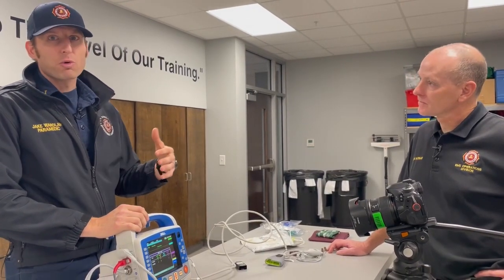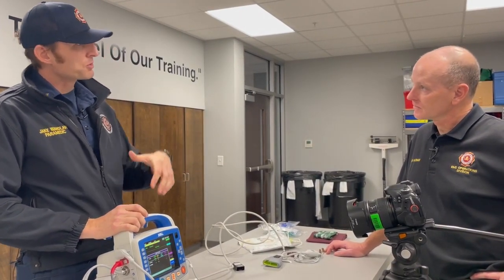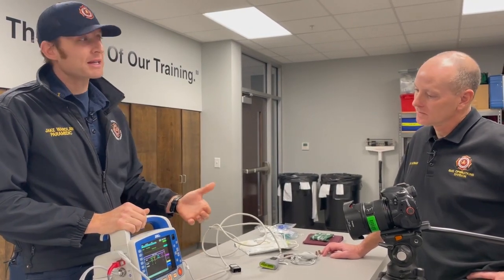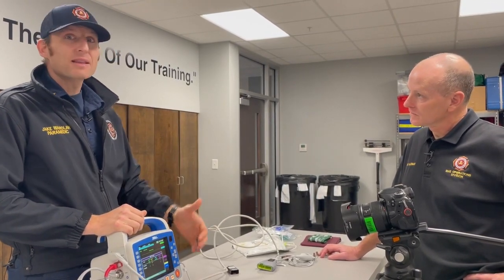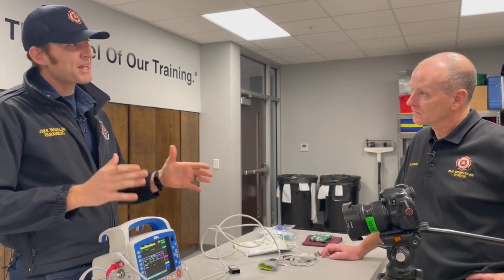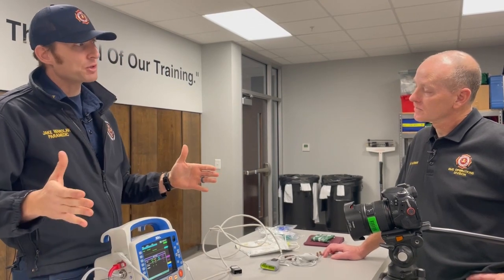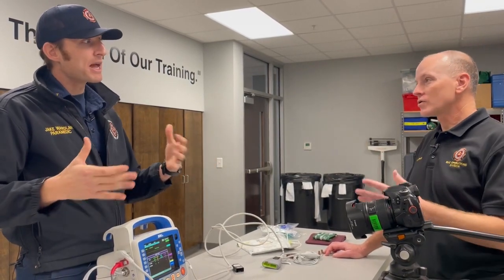Correct. So especially before we convert them, meaning we give them medication or some sort of electrical therapy to make them better, we want to capture that moment. So that's what that camera's called. It's called a capture, snapshot. So when we hit that button, it actually gives us about a 12-second time frame. 12 seconds before we hit the button and 12 seconds after. And it hopes to be able to obtain that.